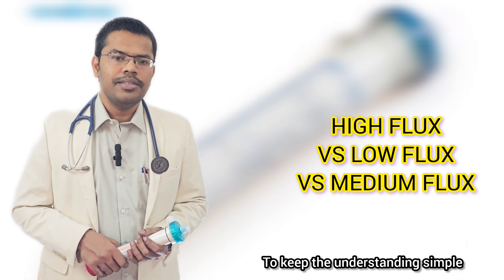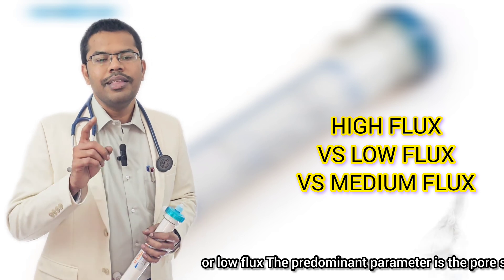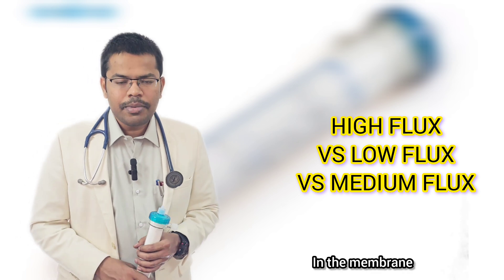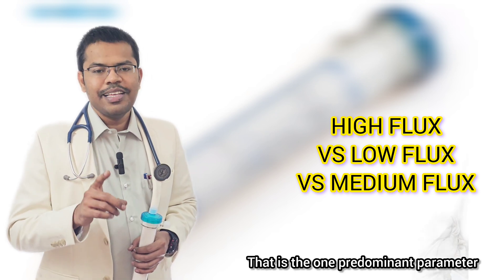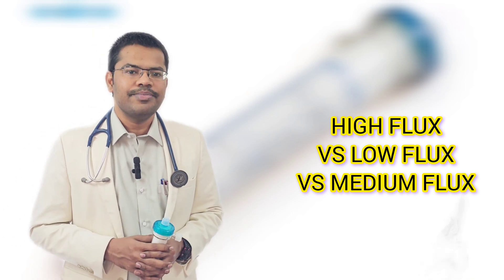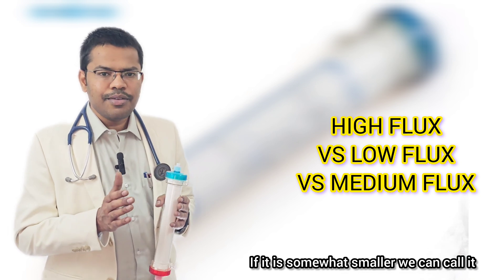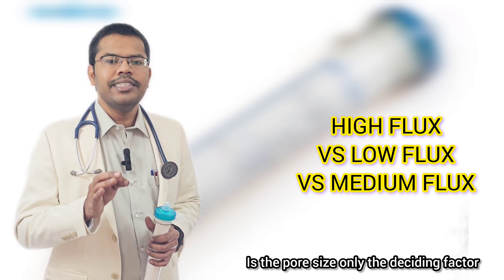To keep the understanding simple, the one predominant parameter that decides whether a dialyzer is high flux or low flux is the pore size. The pores — or holes — are located in the membrane of the micro-capillary within the dialyzer. If the pore size is bigger, we call it a high flux dialyzer; if it is smaller, we call it a low flux dialyzer.